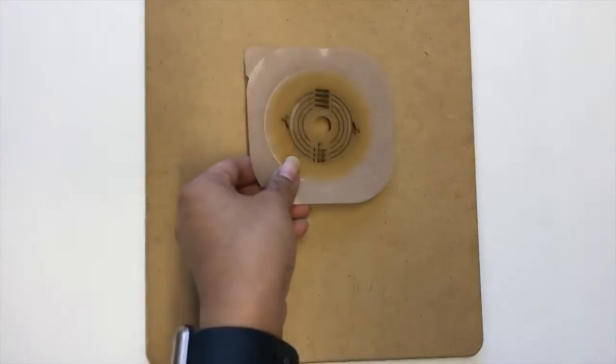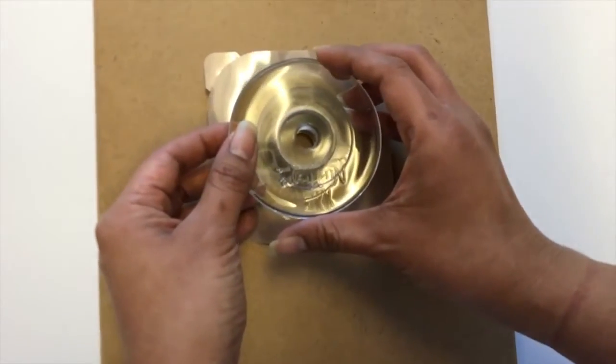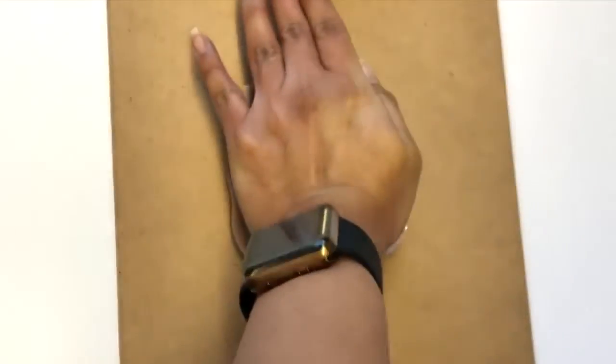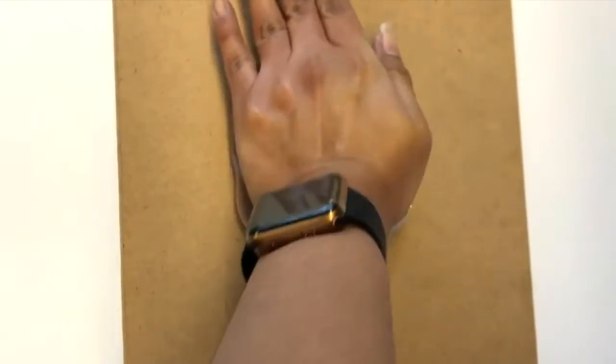To safely use our cutter tool, place your wafer on a cutting board, set the cutter onto the desired placement on your wafer, and press in a circular motion using your body weight, as shown here.